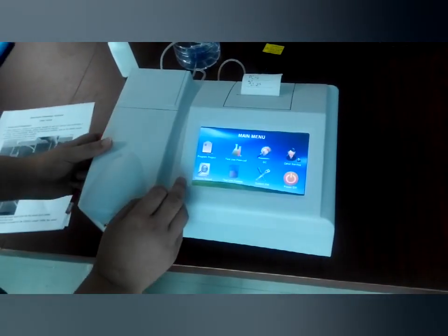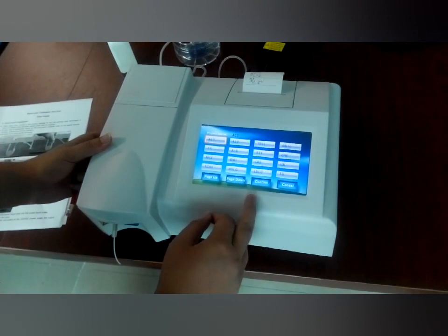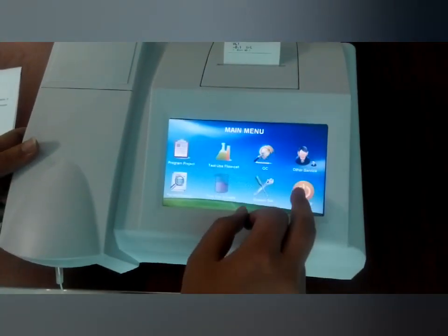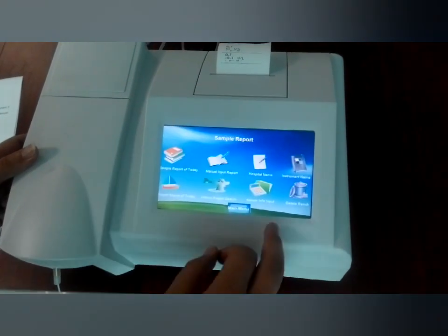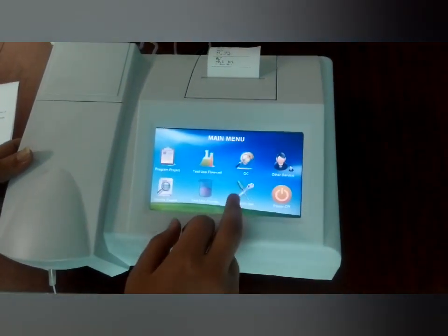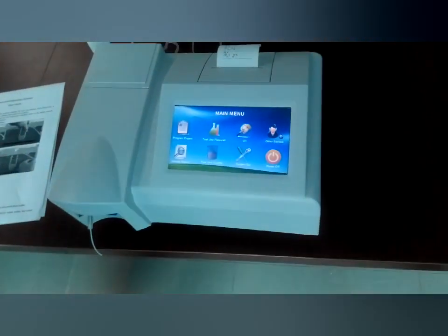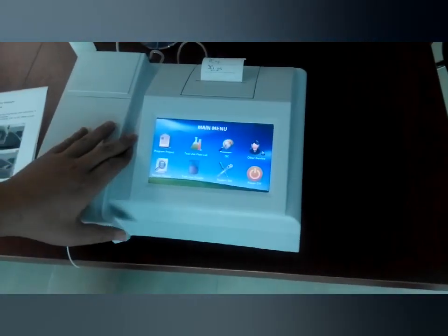We should check each item program. Click it and cancel, click it and cancel. After checking, it shows that this machine is okay.